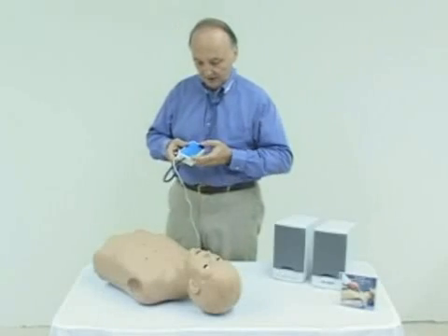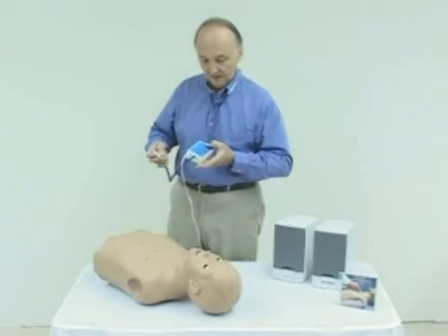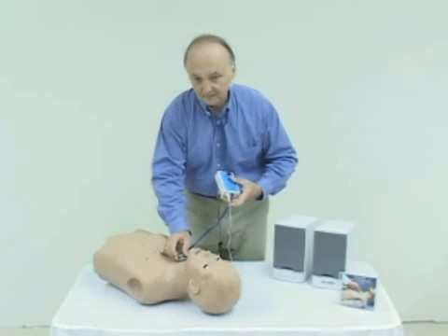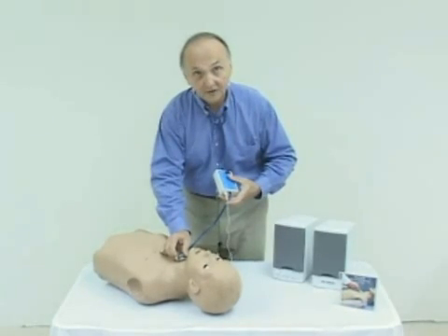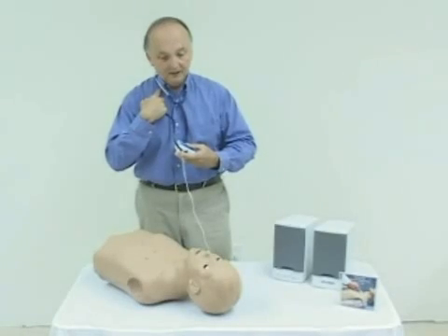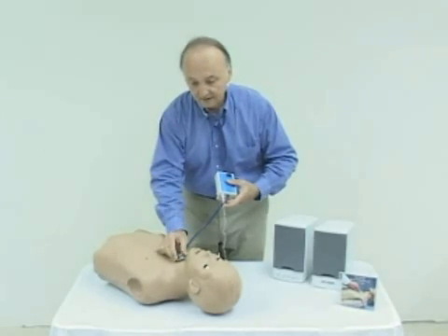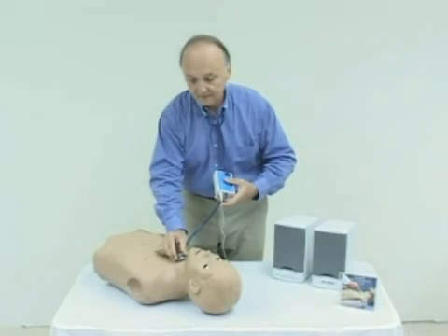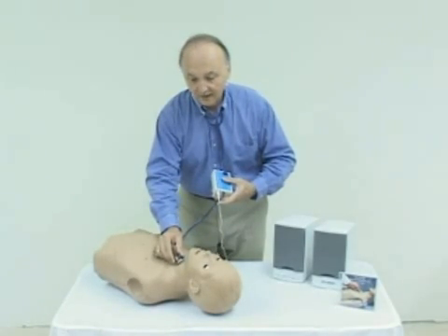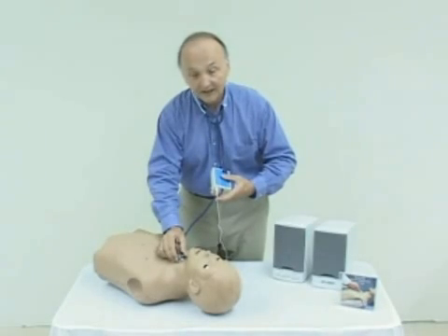Let's see how this particular one works. We have selected a menu of 13 different sounds, turned it on, and we'll place the distal end of the stethoscope near the trachea. Notice that you can hear the tracheal sounds through the speaker, and of course you'll be able to hear them through the stethoscope as well. Notice that when I remove the distal end of the stethoscope, the sound naturally goes away. As we go away from the point where that sound is supposed to be heard, that sound disappears — just like a real patient.